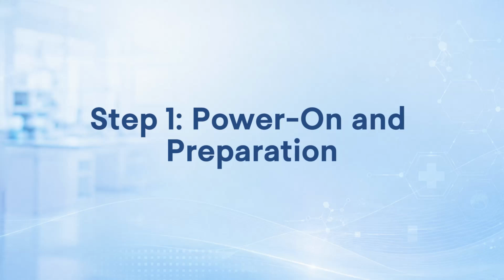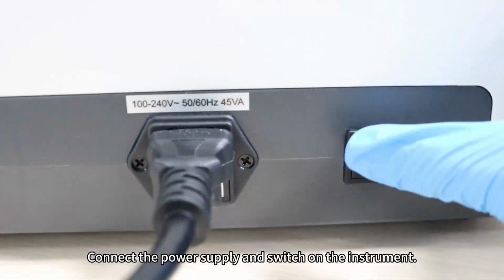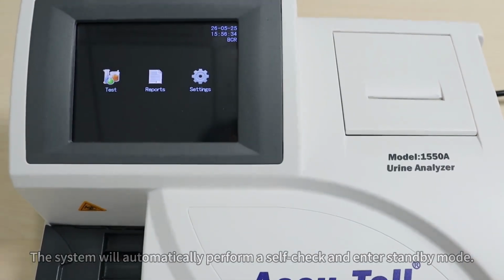Step 1. Power on and preparation. Place the analyzer on a clean and stable work surface. Connect the power supply and switch on the instrument. The system will automatically perform a self-check and enter standby mode.